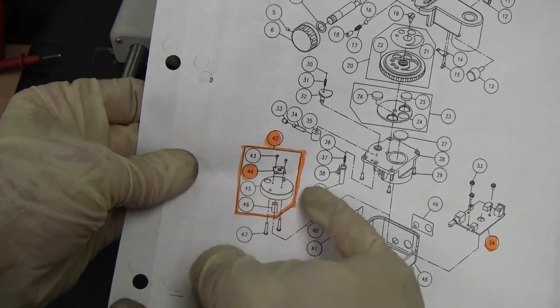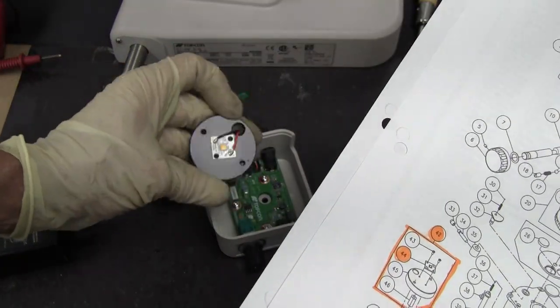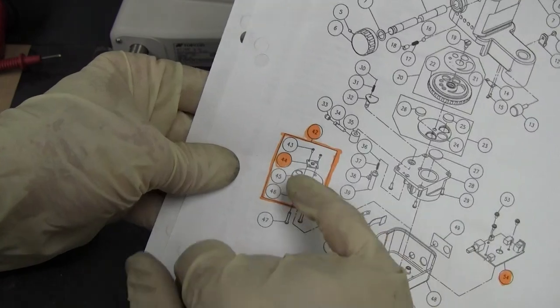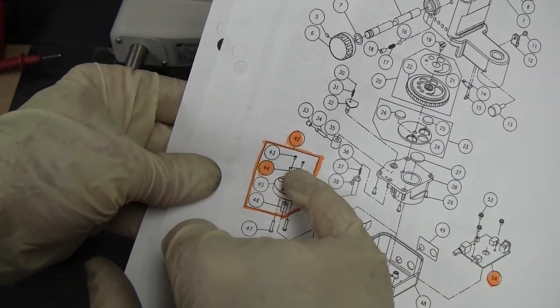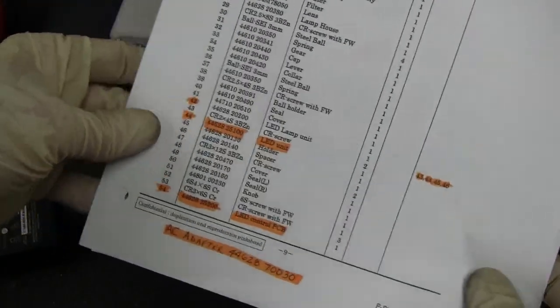If you wanted to get the whole thing you could, and you might have to, but I don't know. If you can just get the LED, that's all the parts you would need. And here are the part numbers.